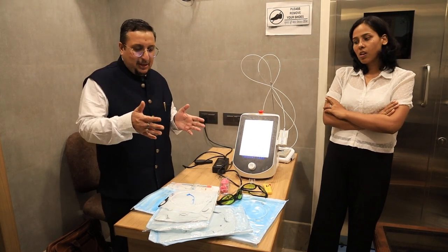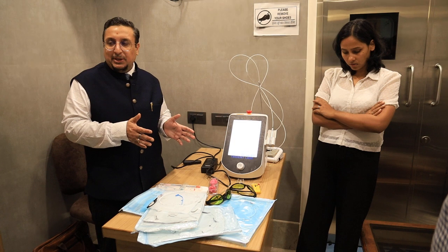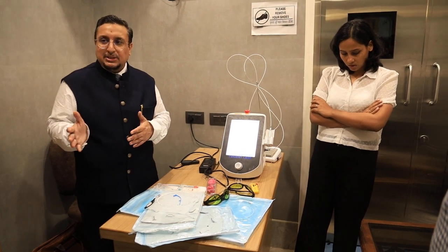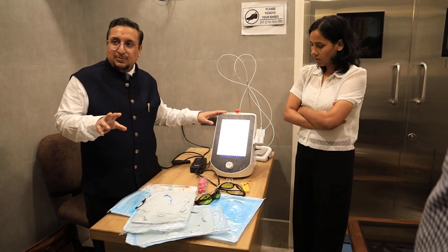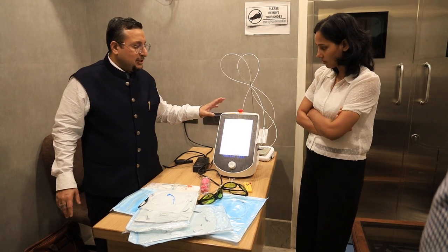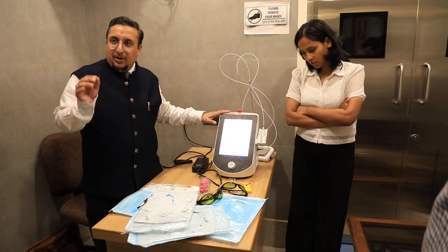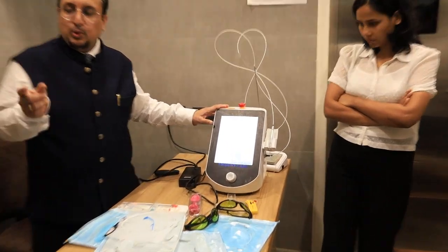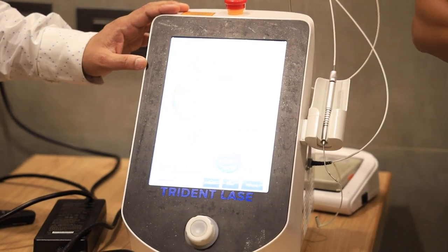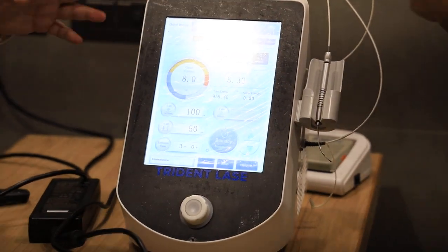There are basically two machines. The 15 watt machine with 980 nanometer wavelength and another with 1470. And there is some machine which is a dual wavelength — this machine has 980 also and 1470. You can operate at 980 nanometer wavelength and 1470 nanometer wavelength also.